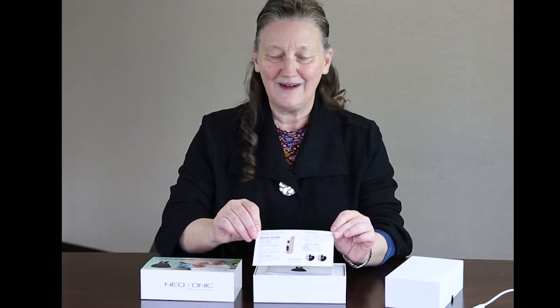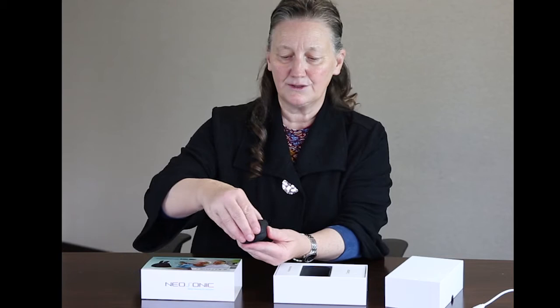Inside the box you will find our quick guide, our MXRIC rechargeable hearing aid owner's manual, and then we will pull out the hearing aids. The hearing aids come in a nice little box to store them in.